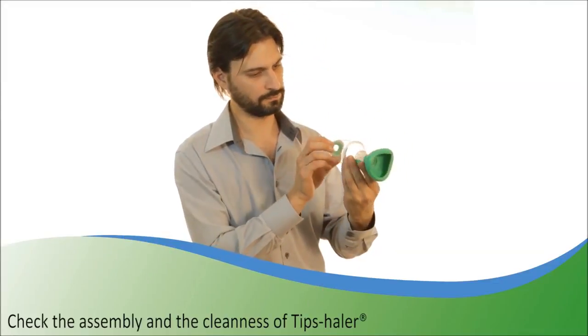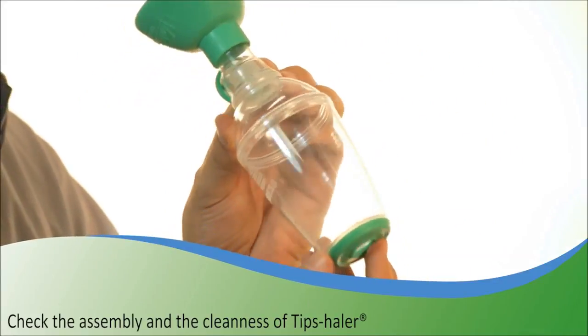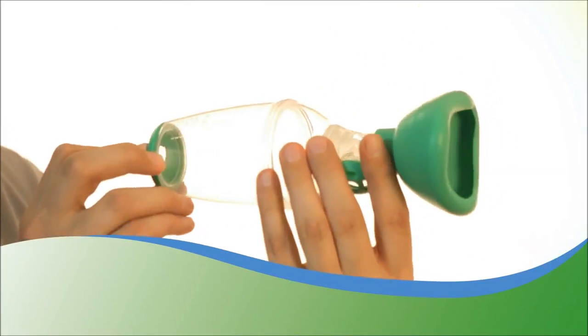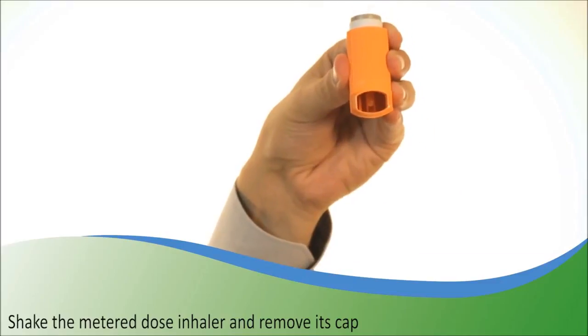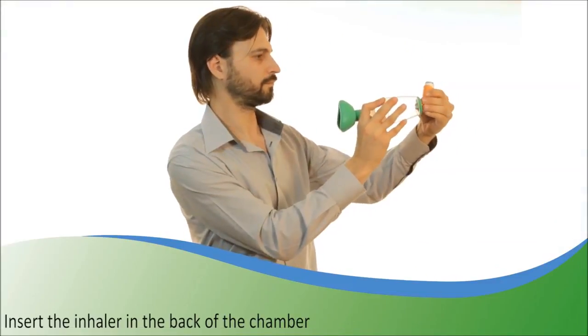Before use, please check that all parts of the Tipshaler are well connected and don't contain any foreign matter. Shake the metered dose inhaler then remove its cap. Insert the inhaler in the back of the chamber.